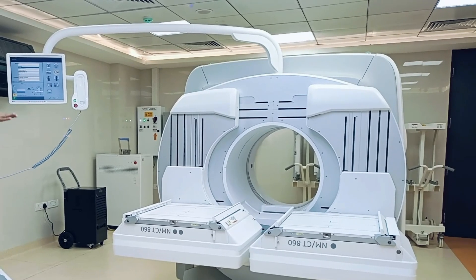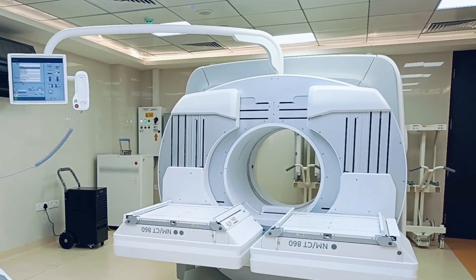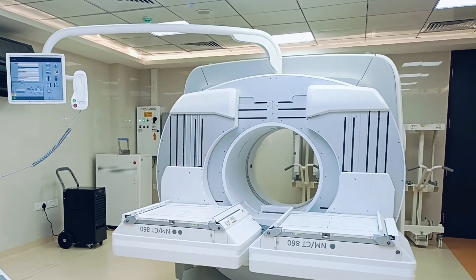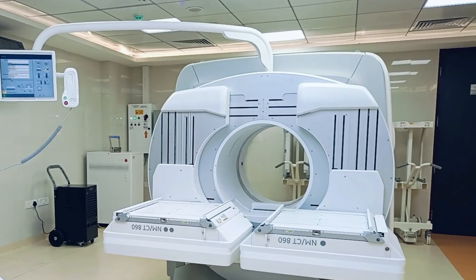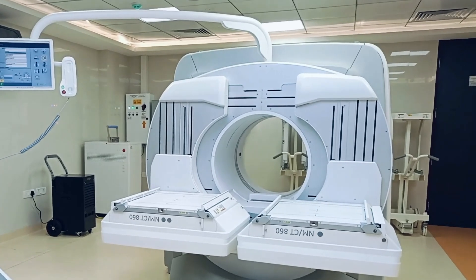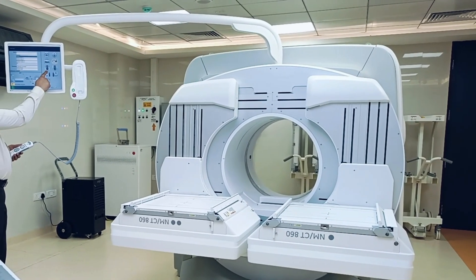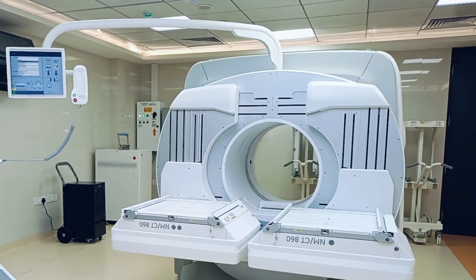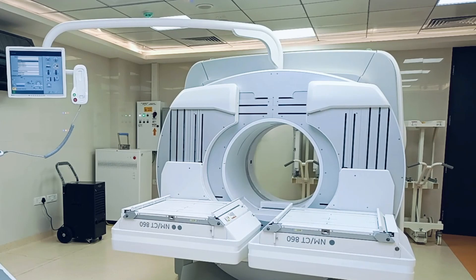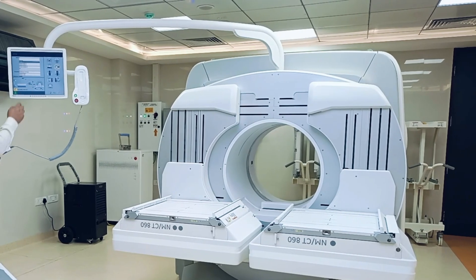You need to keep a big chair for the patient in this mode. The fourth option is the vertical low mode.